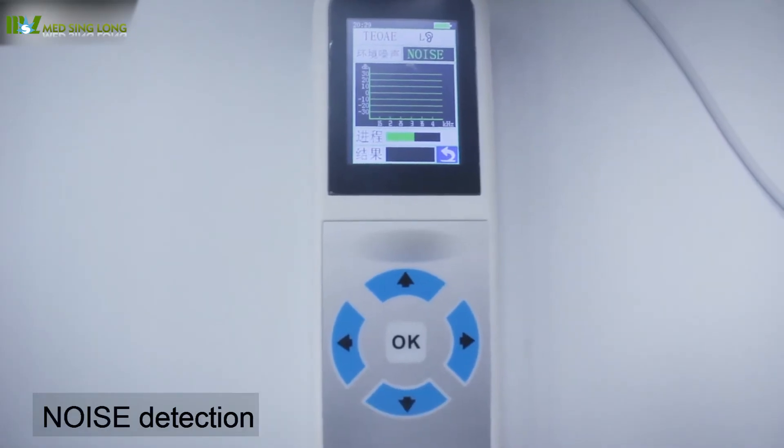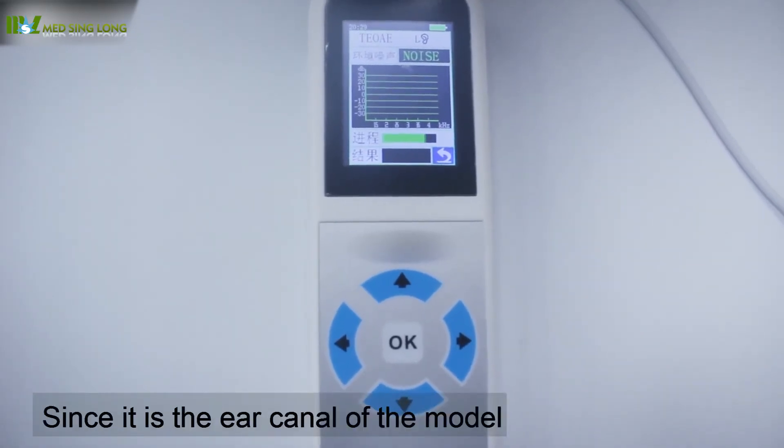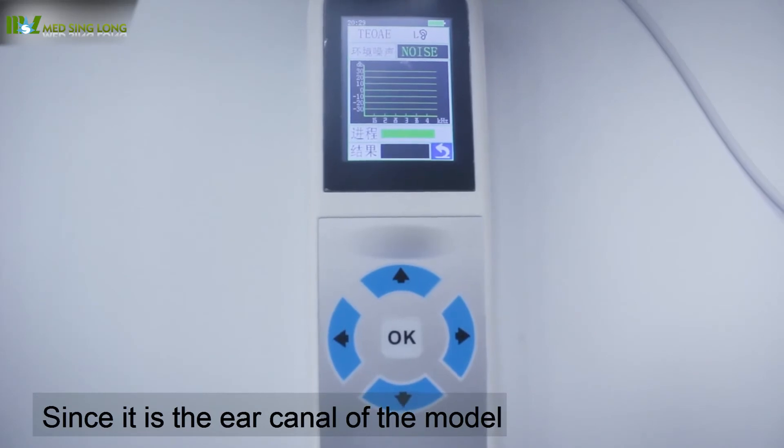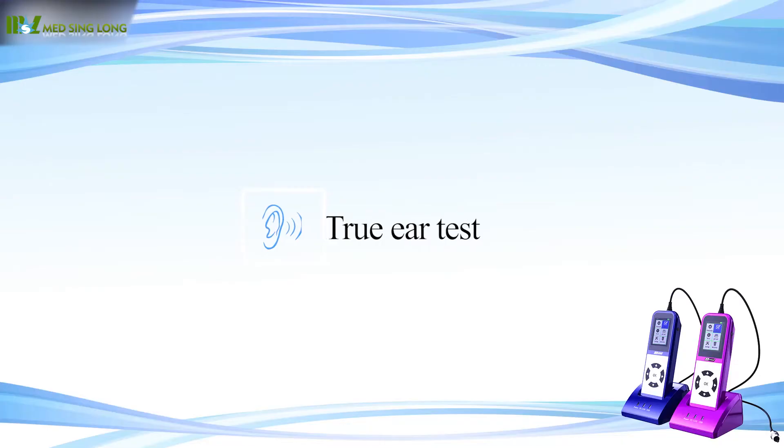First, it enters the environmental noise detection. Since it is the ear canal of the model, the noise is sure to fail the test.